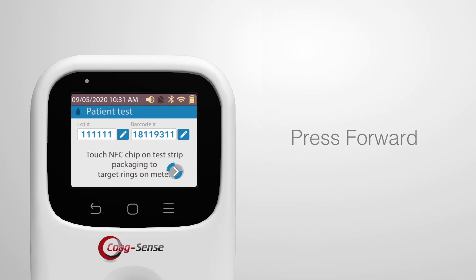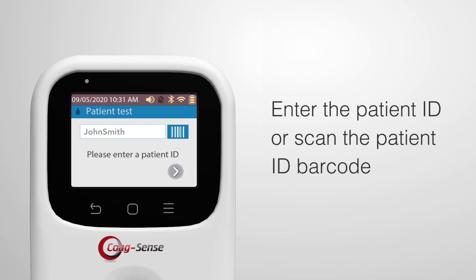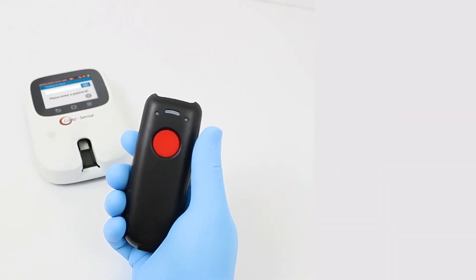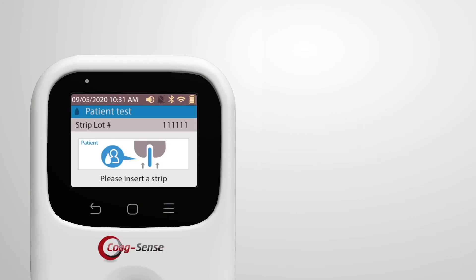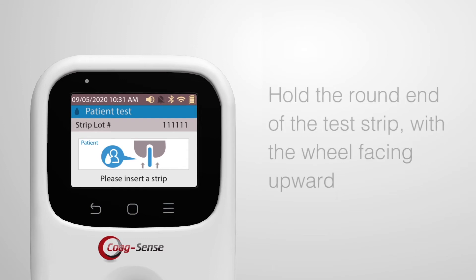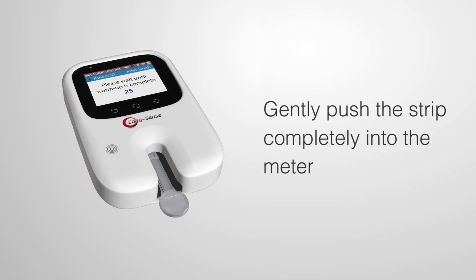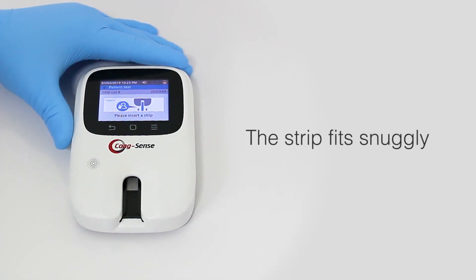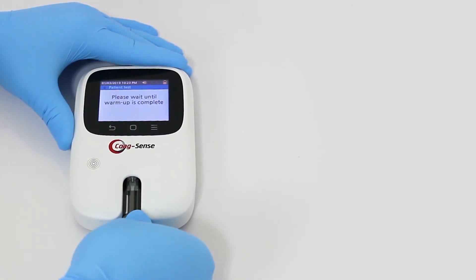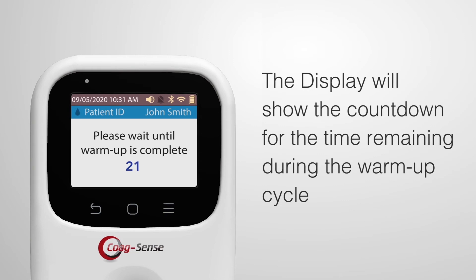Then press the forward button. If the patient ID feature is enabled, enter the patient ID or scan the patient ID barcode using an optional barcode scanner, then press the forward arrow button. The screen will display the message to please insert a strip. Hold the round end of the test strip with the wheel facing upward and gently push the strip completely into the meter. The strip fits snugly and should be pushed all the way to the back wall of the strip holder. The display will show the countdown of time remaining during the warm-up cycle.